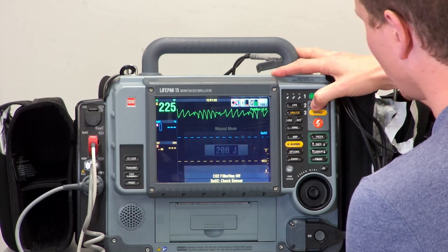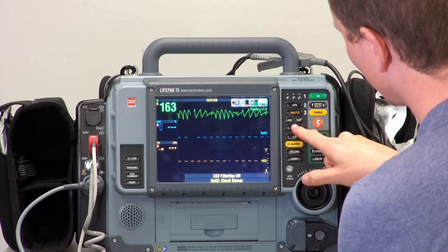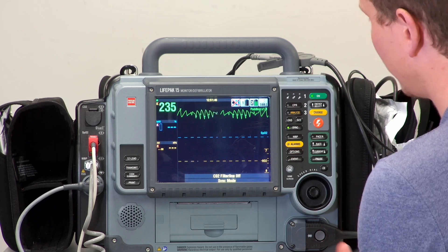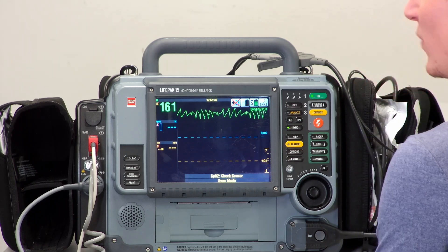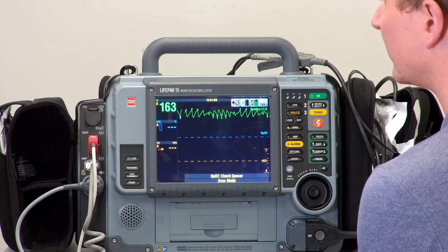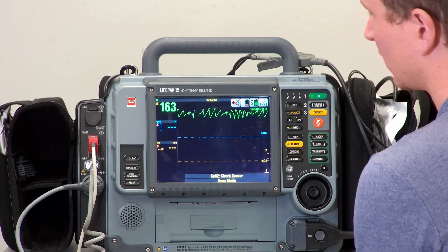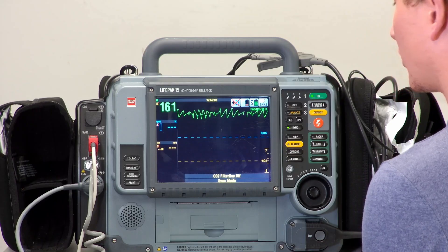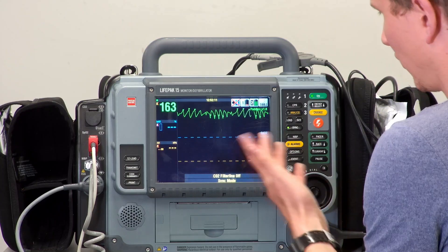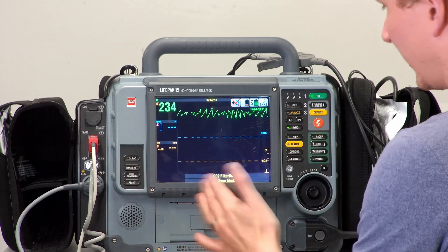First, select the right joules depending on your guidelines — you can start at 100 joules. Make sure you click sync. The reason we need sync is that we don't want to shock on the wrong part of the ECG. If we defib on the T wave, we can have an R-on-T phenomenon, which means shocking on the T wave can put the patient into VF. We want to shock at the right point on the ECG for it to be safe and effective. Here you can see a patient in what looks like a polymorphic VT, and the machine is now trying to find the R wave to shock in a safe spot.